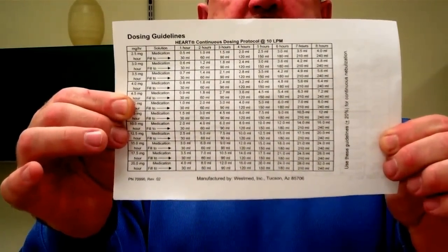You want to check that at least every hour. When you're giving a patient continuous aerosolized medication over a long period of time, you want to make sure that you're not just checking the heart rate, respiratory rate, breath sounds, but you want to have this patient probably in a telemetry unit. You want them to be in an intensive care area. They should be on telemetry, continuous pulse oximetry. You need to check their electrolytes because you could be looking at fluid overload. You could see the cardiac effects of giving too much of the medication. We've talked about beta 1, beta 2, we looked at the alpha effects. But your instructions for your dosing are also included in your large heart nebulizer.